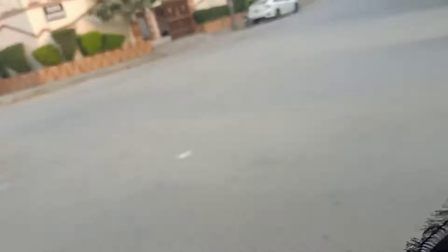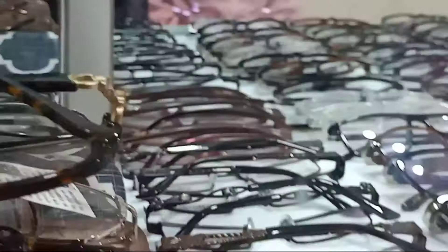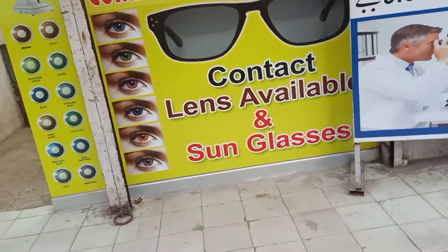I have decided on gray and hazel — these two colors of lenses. I am going to the contact lens shop. Here you can see there are many glasses; they make glasses and contact lenses both here. So now I am going to get the gray and hazel color lenses. I have given them my glasses to check, and my lenses are also being made.